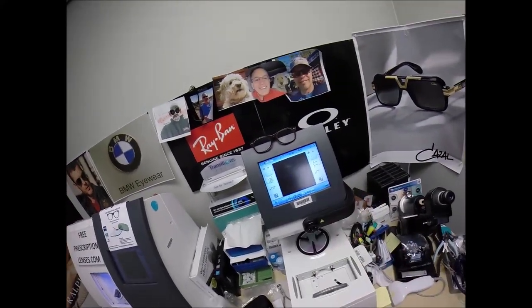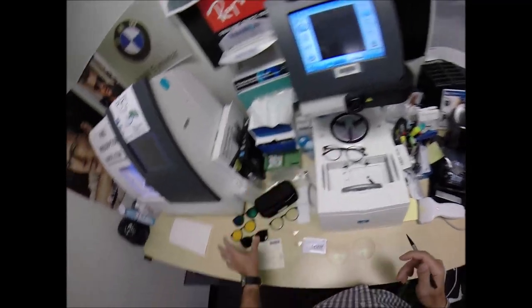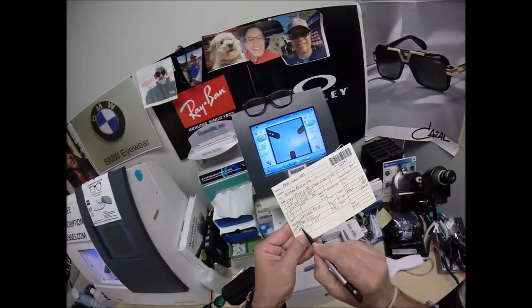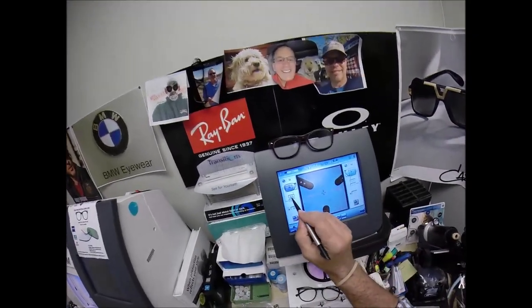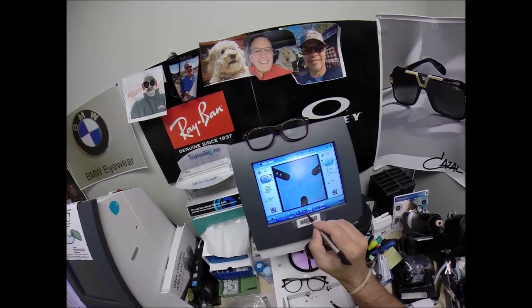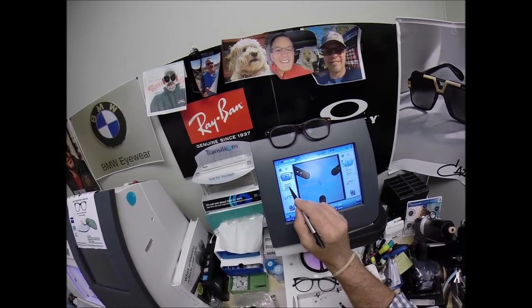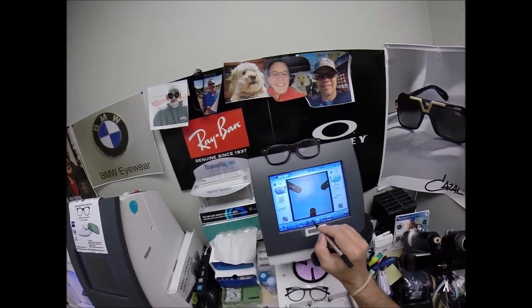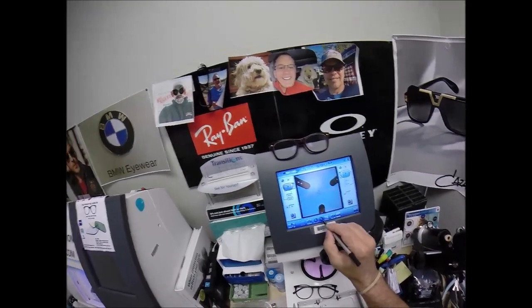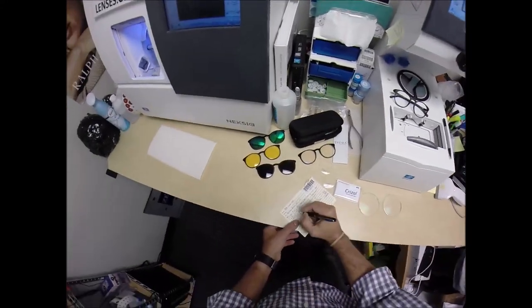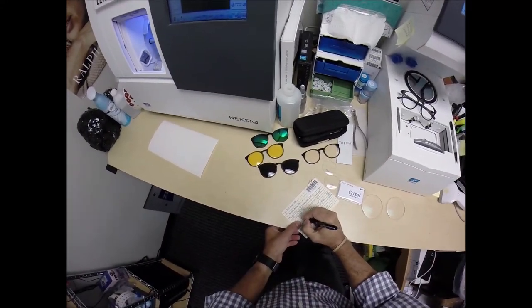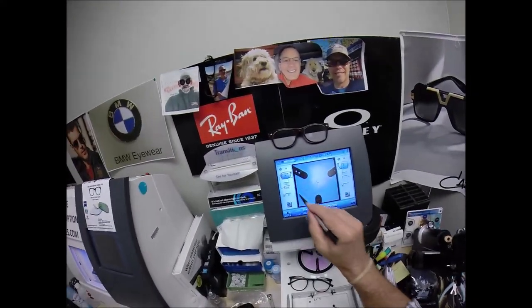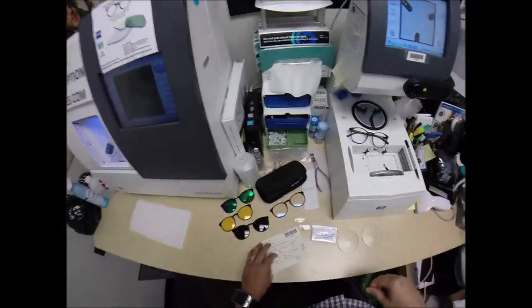So I'm going to move on to the next screen. It tells me to enter your pupillary distance, which is 68 divided by 2 is 34. So I'm going to hit the plus button three times. It goes up in half millimeter increments till we get to 34. I'm going to raise the, oops, come back down. I need to hit that box. Raise the optical center up two millimeters to 24. And actually, you know what, just because this is a little deeper round shape, let's do 24.5. Let's go two and a half because I'm a wild man today.